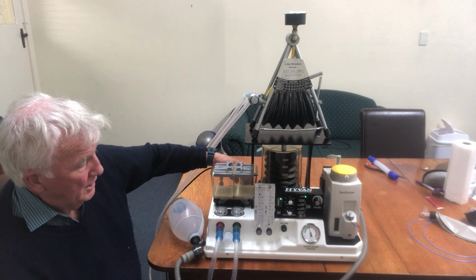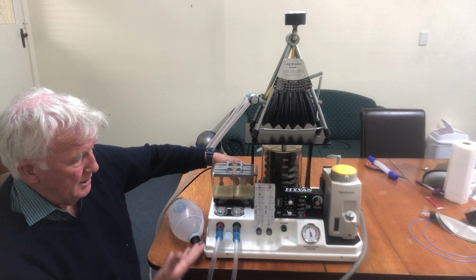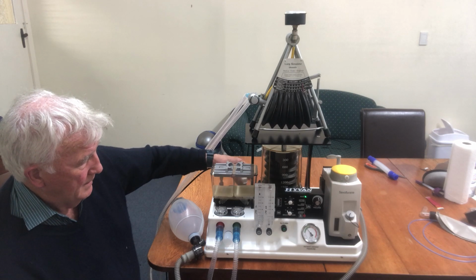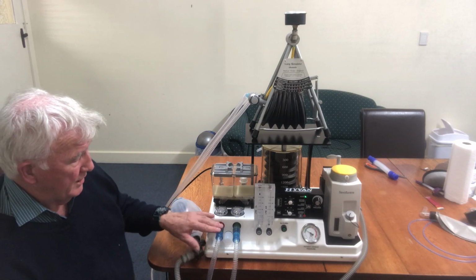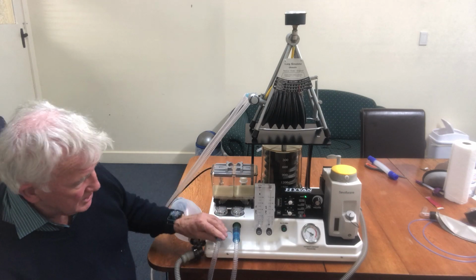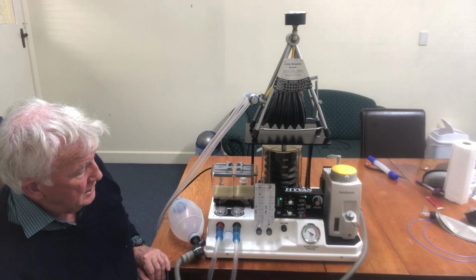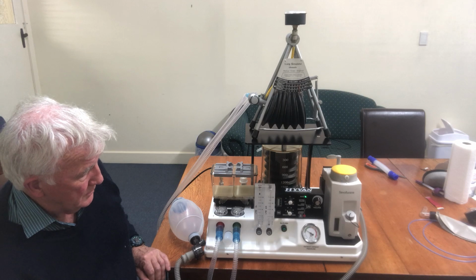And so you can see you don't really need the APL valve. It's not a disadvantage not to have it. So it's as simple as that, really. The reason we did away with the APL valve is I potentially thought it was dangerous. This system's much safer. I've used this system with children, ENT cases. It works very, very well. Laryngospasm, no problem to manage it at all.